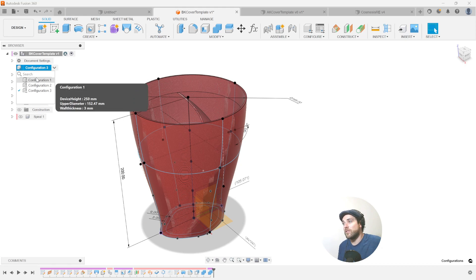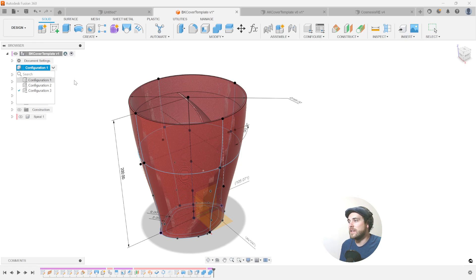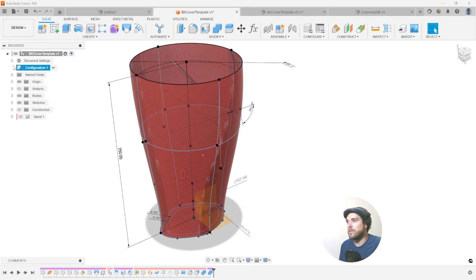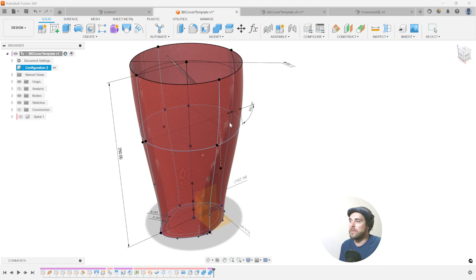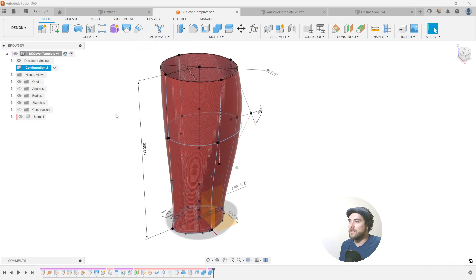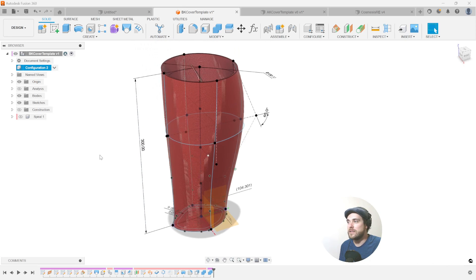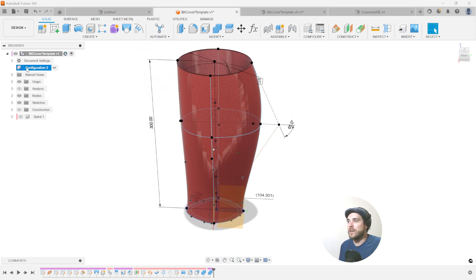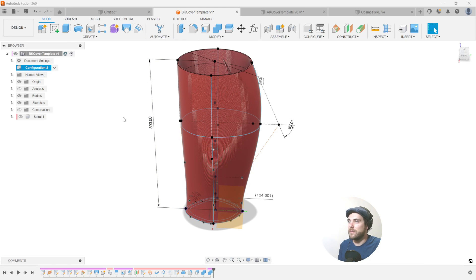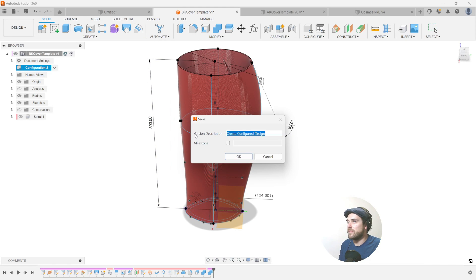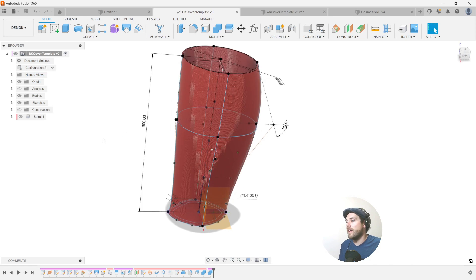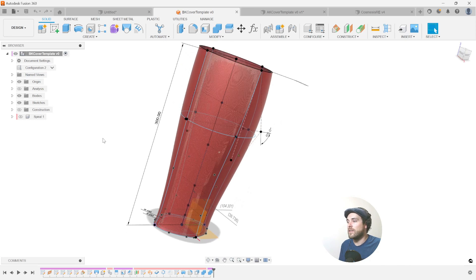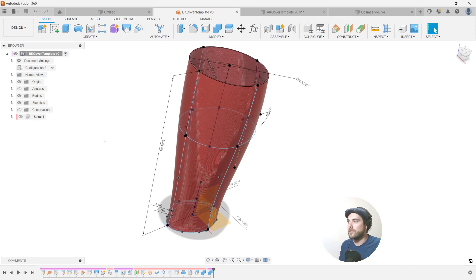So maybe that's a stockier version for a very small pylon. But just like that, that's how easy it is to take a template and to change its configurations to suit different patient needs or to just different configurations that you want to drop into other work. So configuration one sits inside this template as the first configuration using those values. Configuration two. Same thing. We have all of these configurations saved within the template itself. We can actually call upon these configurations inside another file. This is going to save a new design, a new configured design. And configurations can now be called upon in other assemblies.